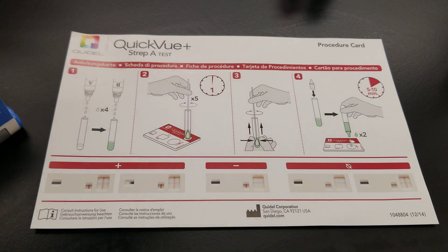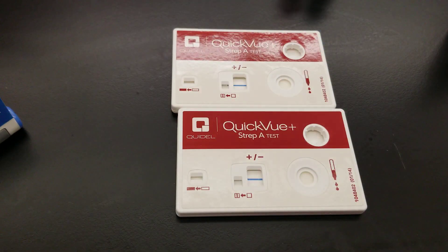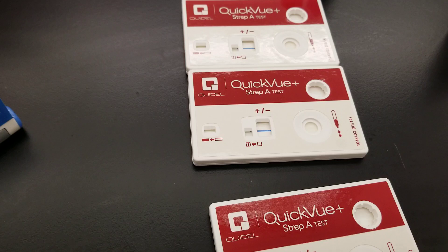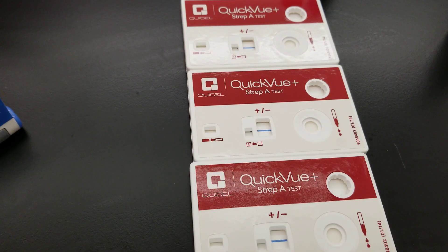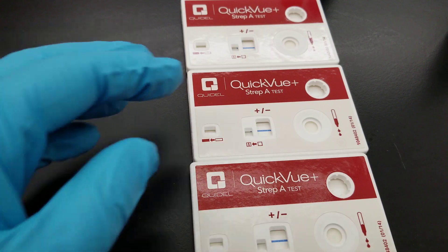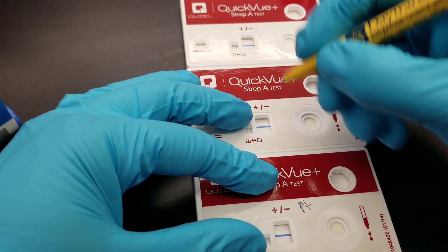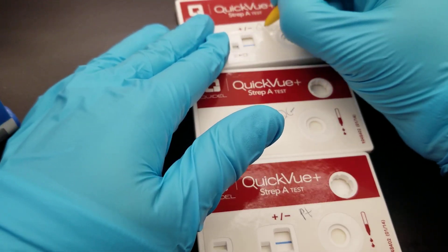We're going to follow what is on this card. The first thing we're going to do is label our cartridges — that's very important. Here are the cartridges. Notice that you have a blue line there, which makes a positive result if the patient is truly positive. You have a control window here that requires a pink line in order for this to be accurate. This one is the patient, this is the negative QC, and this is the positive QC.